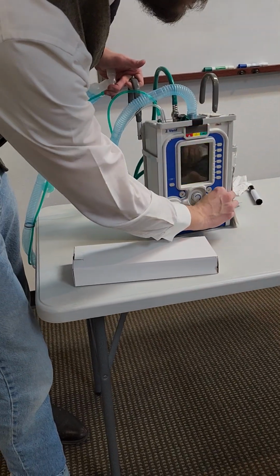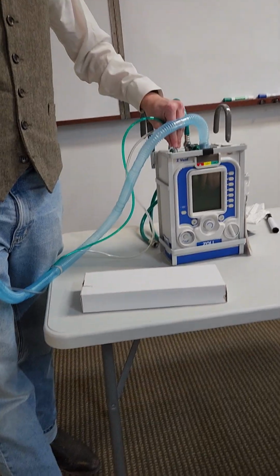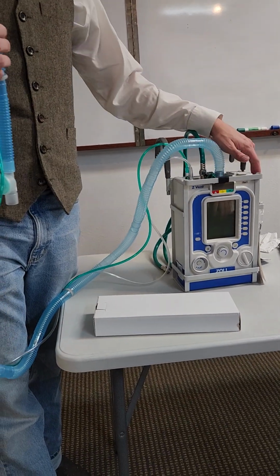Where's your audible alarm? Did you disable it? Must be, because it is a very loud beeping alarm.